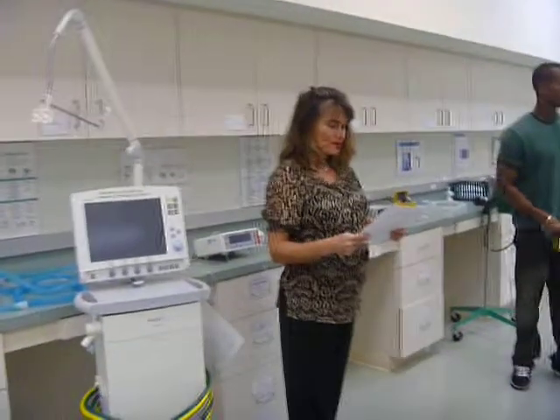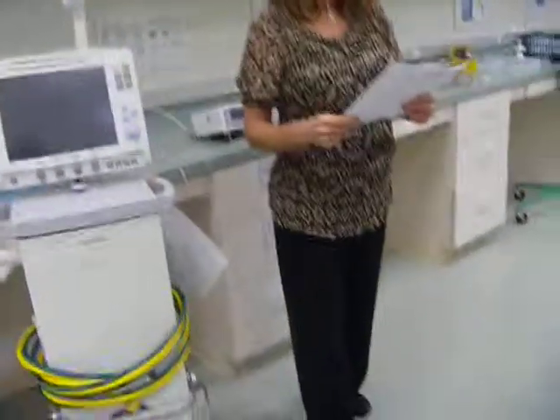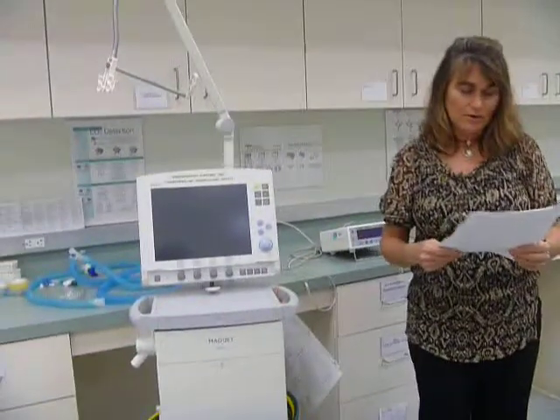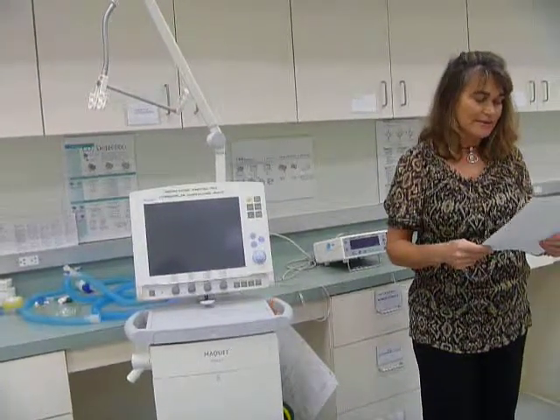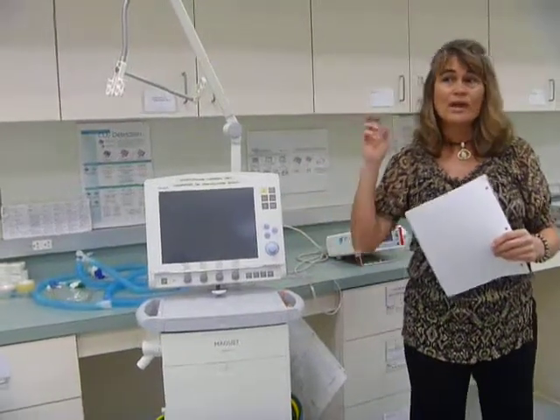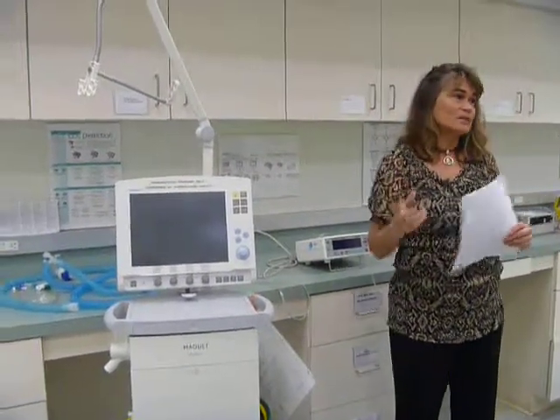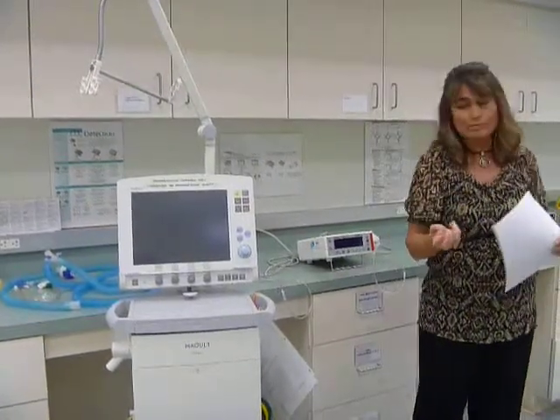It says identify and describe the following. That's where I'm going to start reading. The inspiratory filter. It says to follow the manufacturer's guideline for the type of bacteria filter to place on the inspiratory port. Now when you're putting something on a ventilator, every ventilator is going to be different as far as where the air comes out to go to the patient. It's called the inspiratory port.